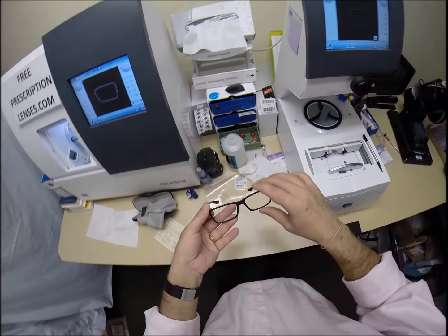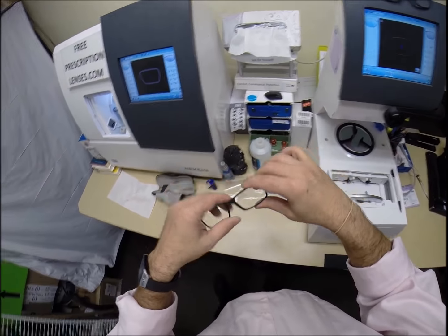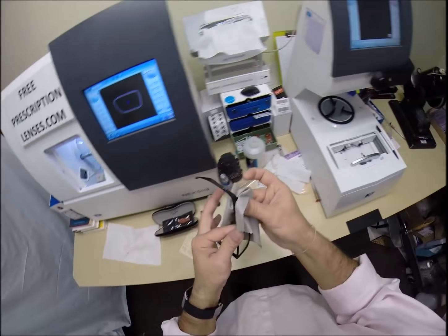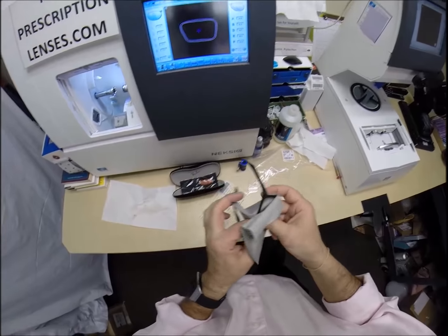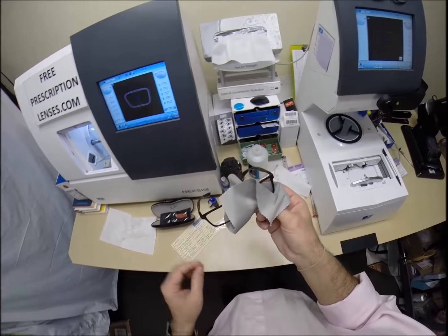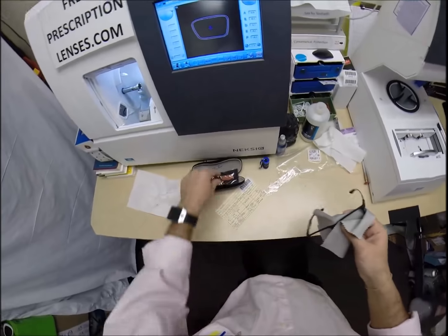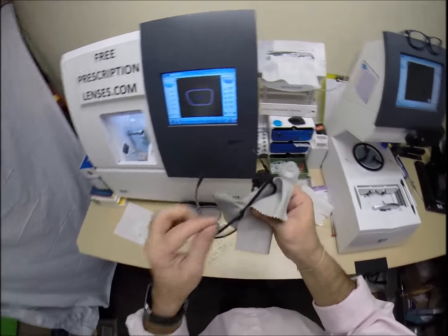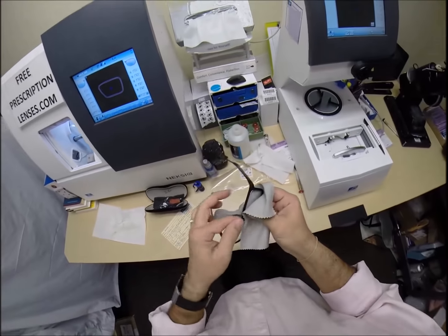Now this is a great frame. It has the carbon fiber. Extremely lightweight, but extremely strong and durable. It has little rubber grips. This does not bend down behind the ear. This has what is known as wrap. A lot of Oakley's have that. So the frame stays on your head. And of course, the rubber grips very well right above your mastoid bone. It's a very lightweight frame. I see one more smudge. And of course, I send out a selfie request. I have your picture on the website. But I also send out cleaning instructions. Not only on the frame and the lenses. But also for your Ray-Ban cleaning cloth. And the cleaning cloth that I will provide. As well as the case. So all of those will last you for years.